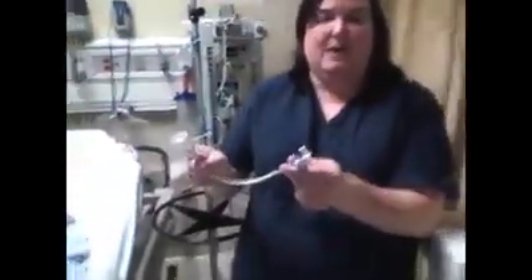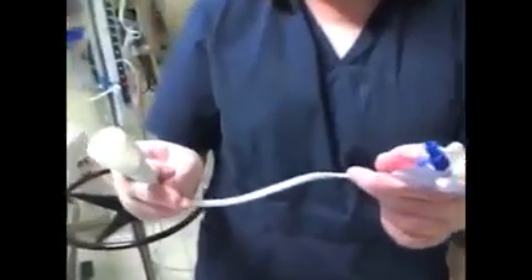When our equipment comes in, the actual transducer will come in a package like this, so you won't have to take it off the arterial line kit.